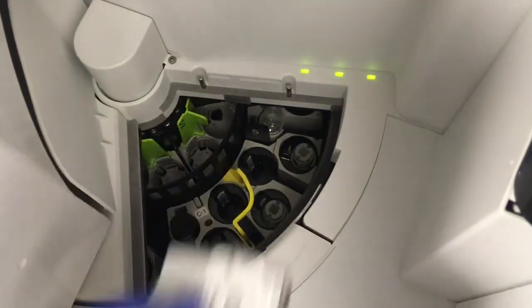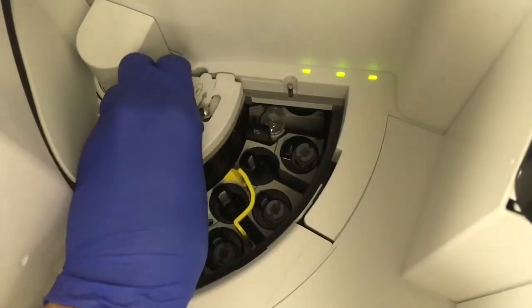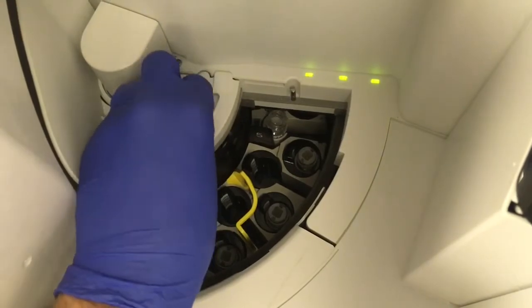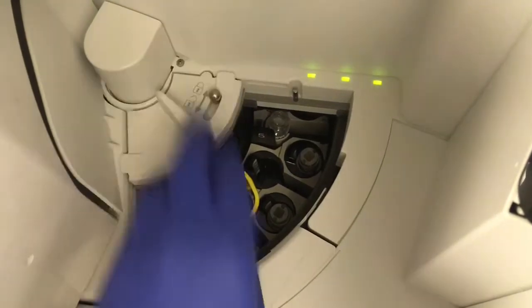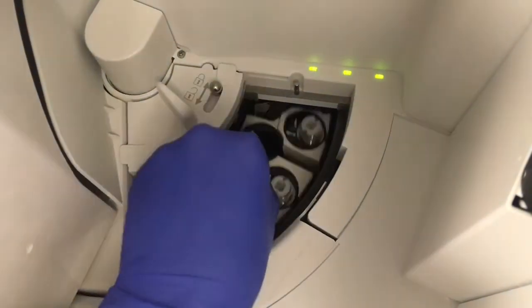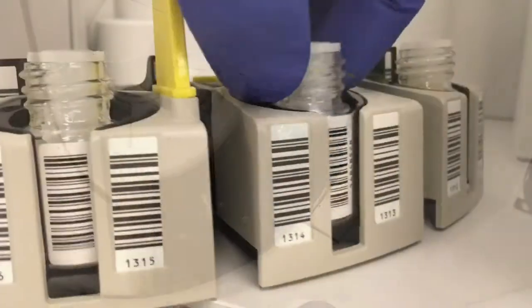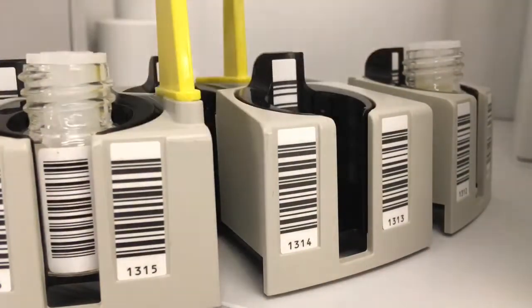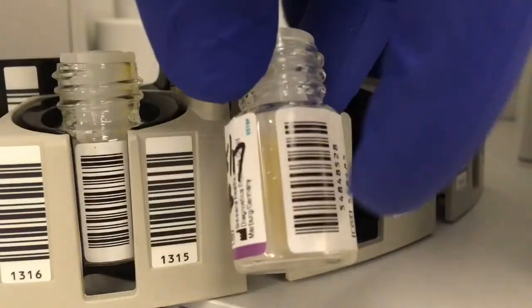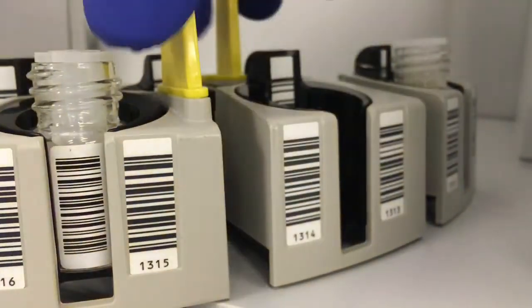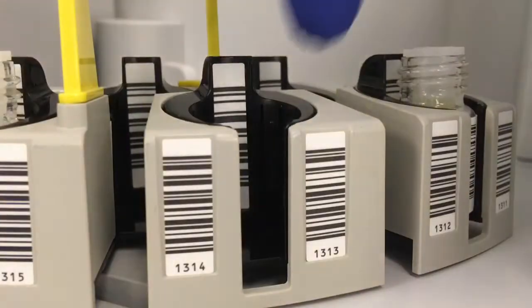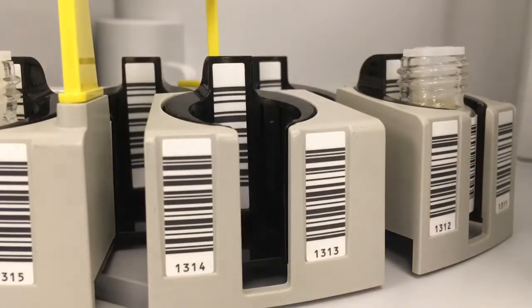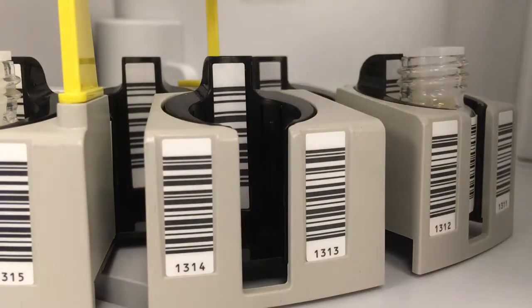I'm going to be removing the rack for the outside reagents there. Just reach in, grab the handle, and pull it out. You can see that these reagents are barcoded, and there are slots in the rack. You want to line up that barcode with that slot so that the analyzer can read what reagent it is.